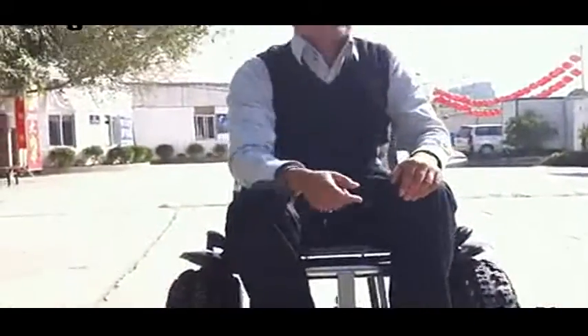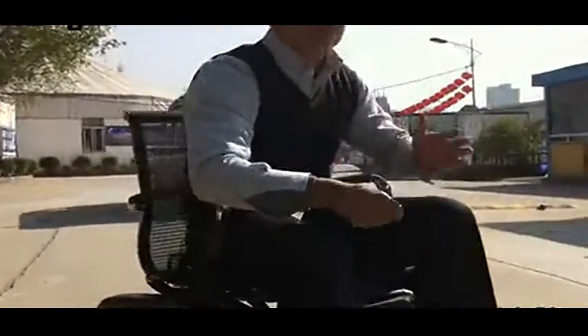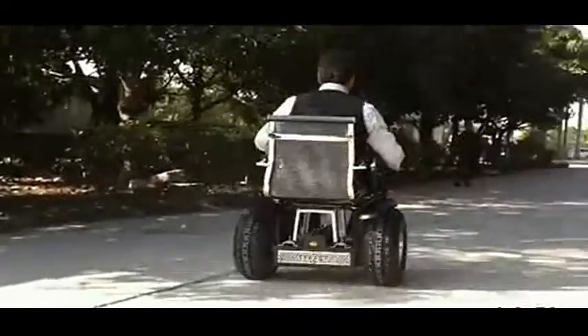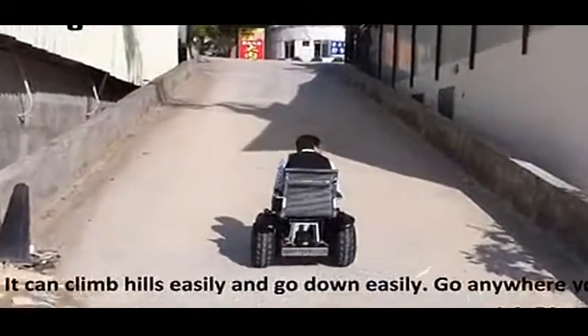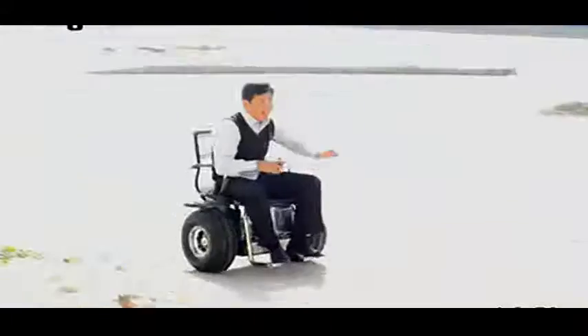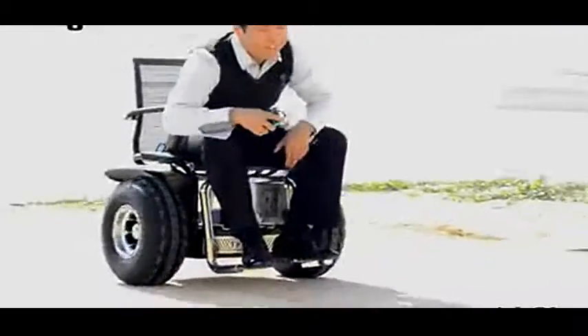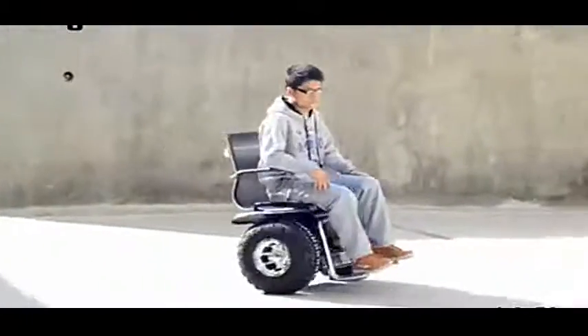Now there is a car coming, but I don't worry. If I want to go forward, I lean my body like this. Go. Let's go. We'll be right back.